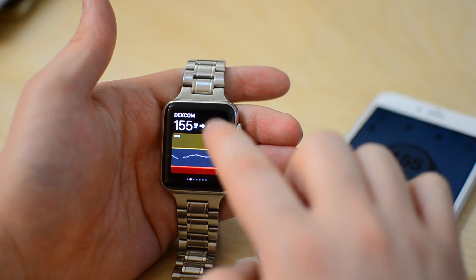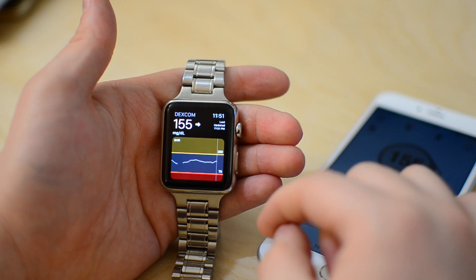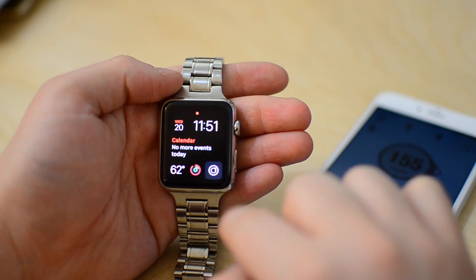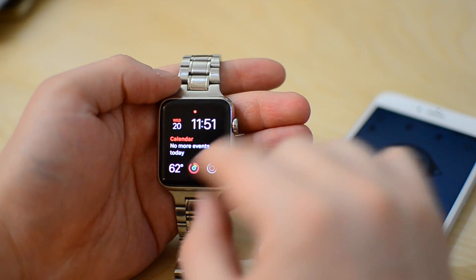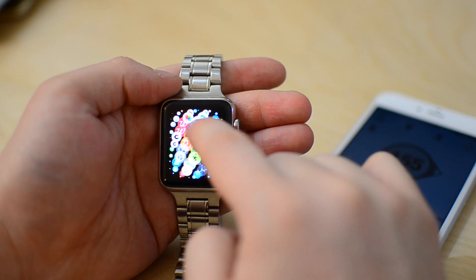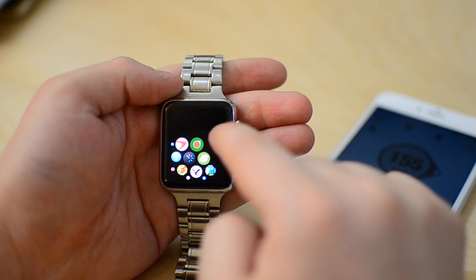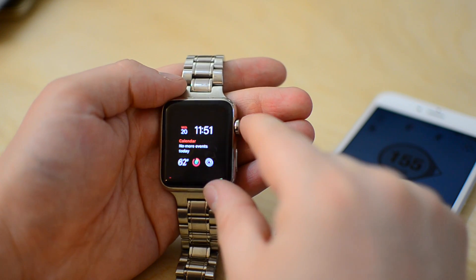You can tap on that glance itself and launch straight into the application, which looks absolutely identical. And you'll notice this looks pretty much the same as it did for the G4. The one addition is this complication — right there on your Apple Watch home screen you can tap on that, and it's a lot faster than searching through all your apps on your watch trying to find the Dexcom one. It's just a simple complication right on the lock screen — you tap it and go straight to the app itself.